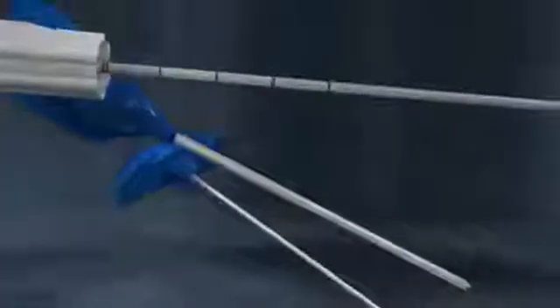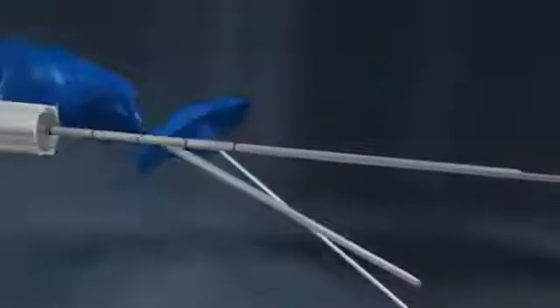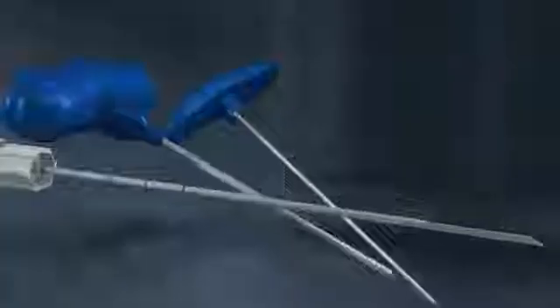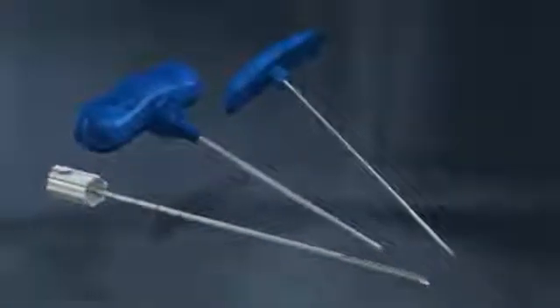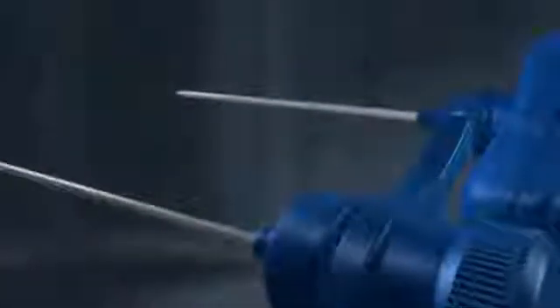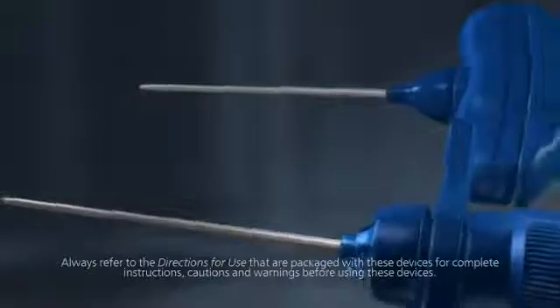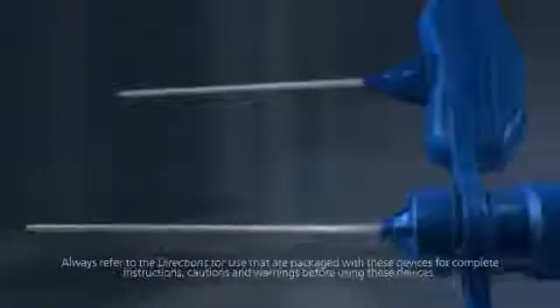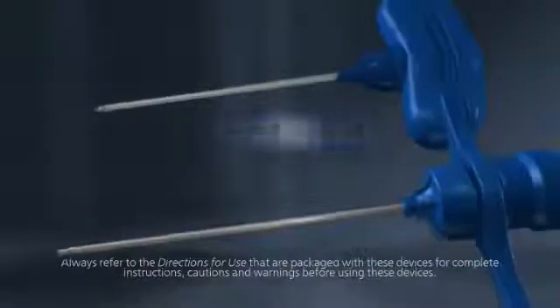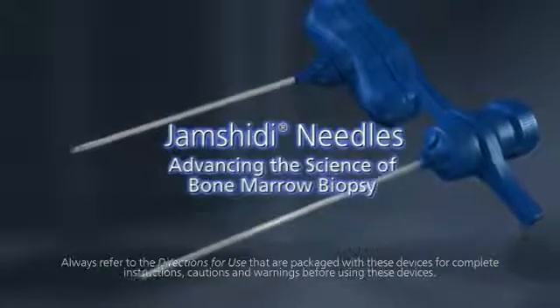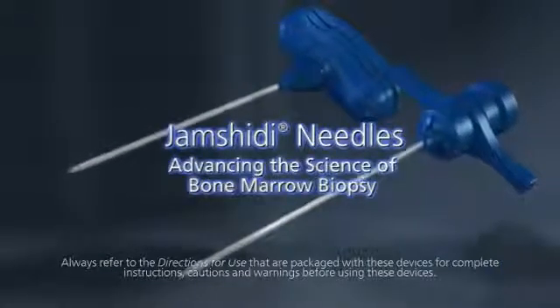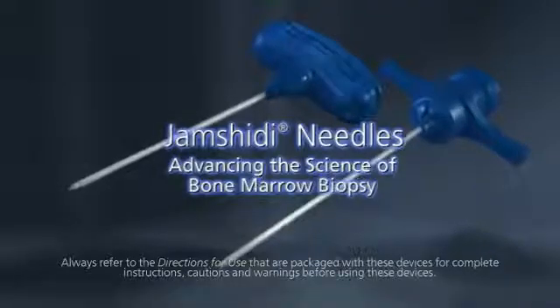Available separately or as a complete system, the T-Handle Jamshidi Bone Marrow Biopsy Needle and Marrow Acquisition Cradle combine proven performance with innovative design to help you confidently perform procedures and obtain quality specimens virtually every time. Jamshidi Needles, advancing the science of bone marrow biopsy with two proven disposable needle and aspiration options. From CareFusion.